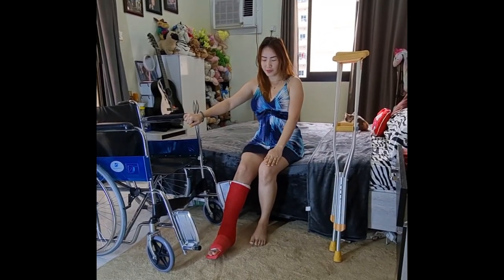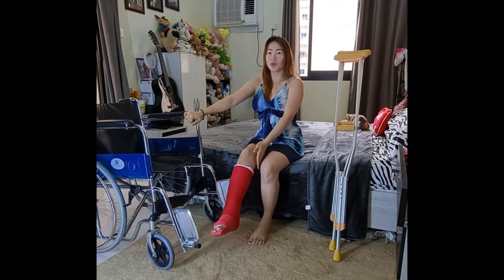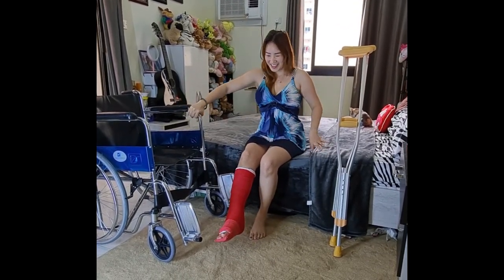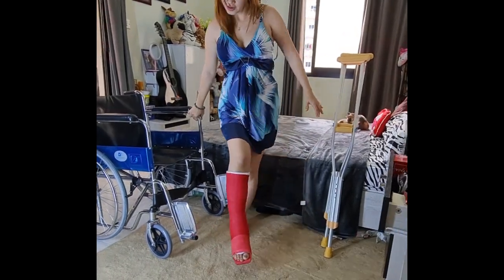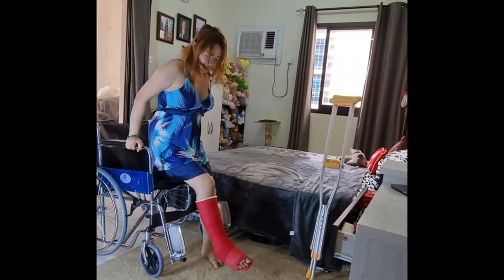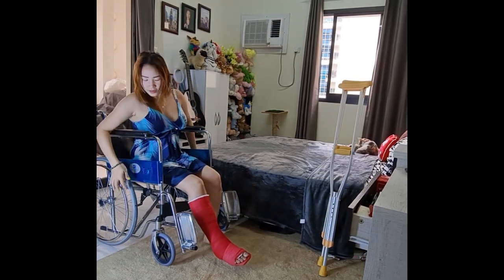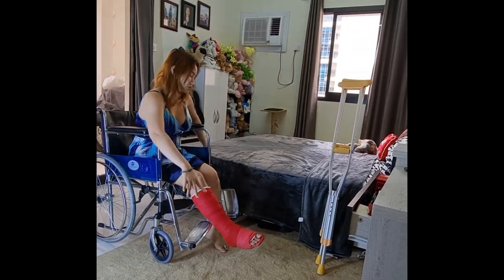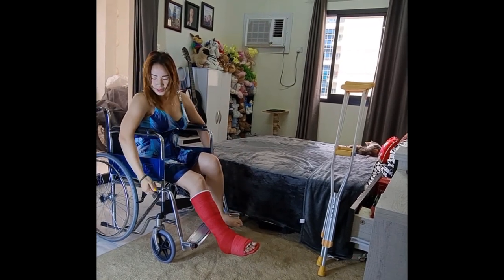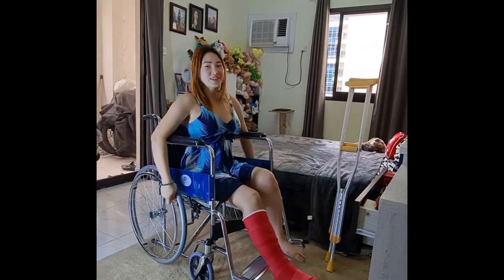I'm going to use this one — this is the good side, and the weak one I'm going to do like this and touch here. Then I can do it this way, then manually unlock this, then going forward, and finish.